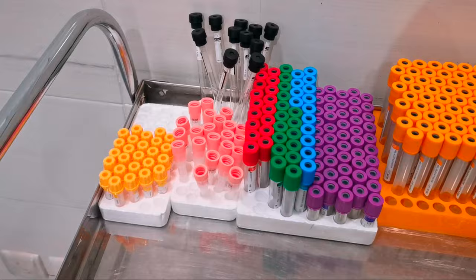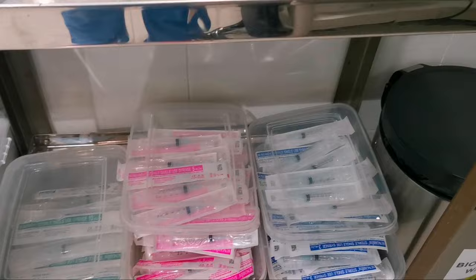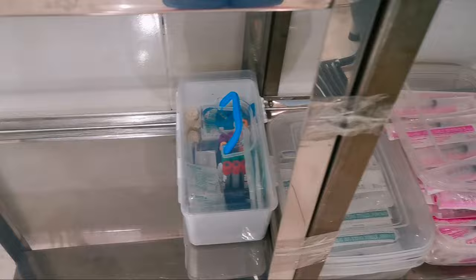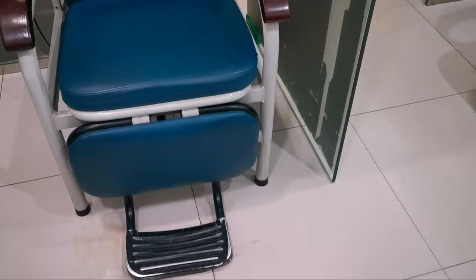What's inside my cabinet slash refrigerator vlog. First let's go to the extraction room where we can find the tubes and some materials for venipuncture such as gauze, alcohol pads, plaster, syringes, and puncture-proof container. We also have infectious and non-infectious waste bins and a small warding box. This is the extraction chair where patients can sit comfortably.